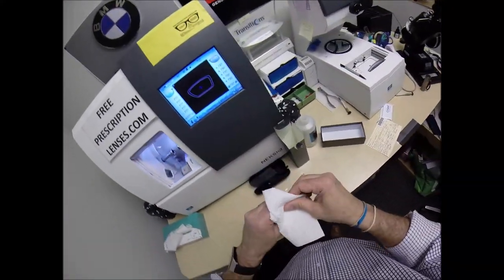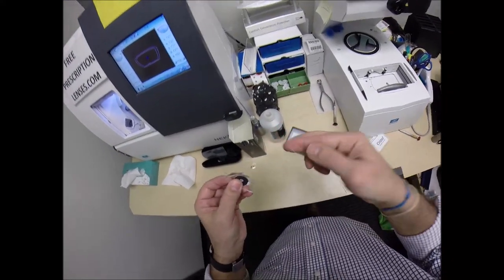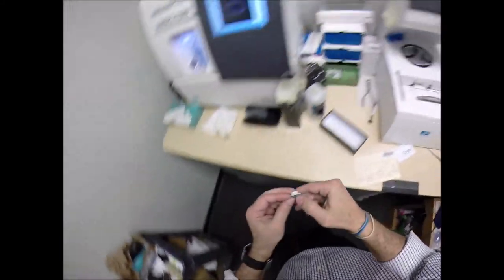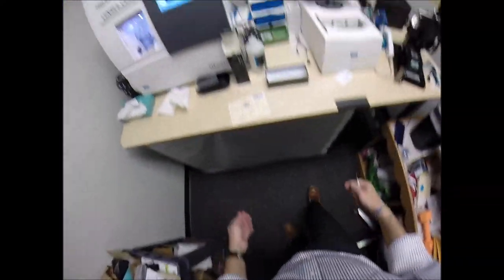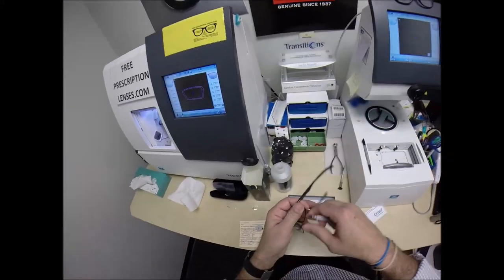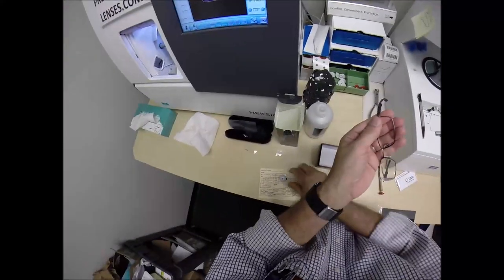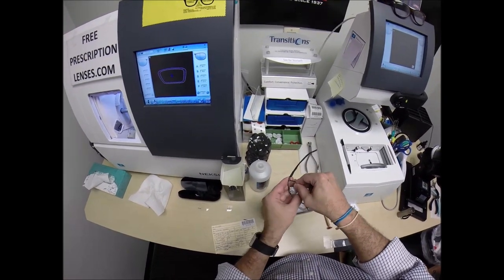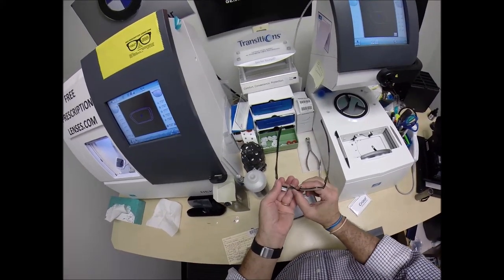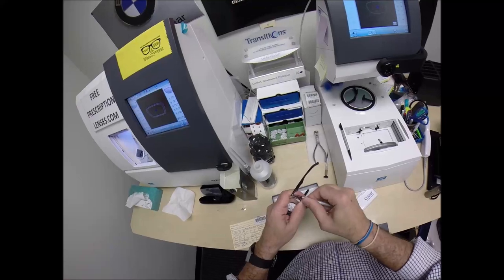Let me take the left lens out and dry everything off. Get the optical sawdust off the lens — a lot of it right there. I'm going to Lefty Lucy with the frame upside down, keeping my finger over the screw. Once I know that the lens is in there all the way, I'll start off with a little righty-tighty. The block's going in — I'll place the magnet against the other magnet in the chuck, which I now like to call the Dirty Larry. Flip that over to L and hit the start button. Just like before, the door closes, the clamp shuts.